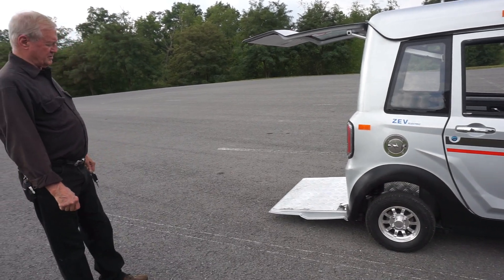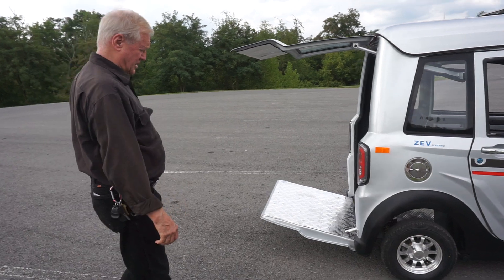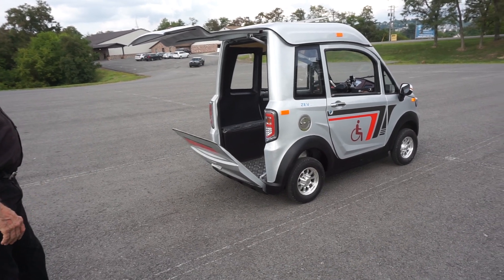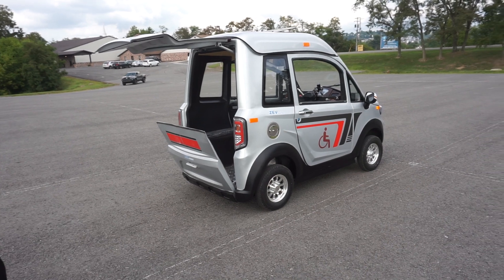You can see when the tail goes up, the tailgate goes up — it's sequenced. The bottom has to go up first, and then the top one covers up the tailgate. This is not a liftgate; it's just made as a ramp.